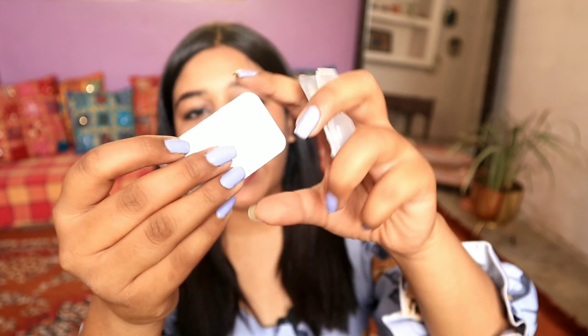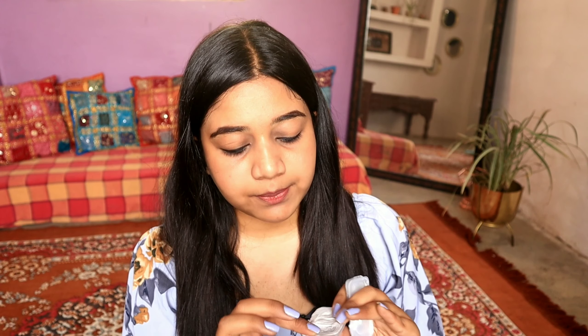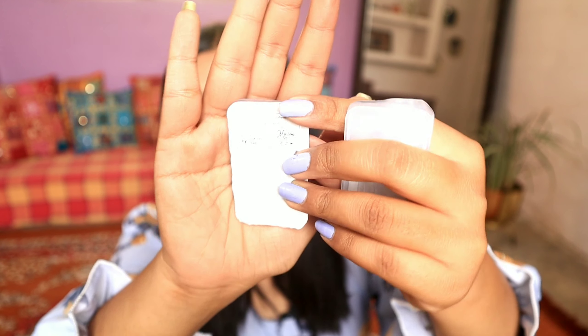The instructions say you have to wash your hands first, so I've just washed my hands with soap and they're completely clean. Inside the purse is the lens packaging, which has a beautiful holographic appearance. You get two blisters which contain the lenses inside the solution. You just peel it open and the lens is submerged in solution — it's very good thick sealed packaging. Behind it you get all the details on screen.